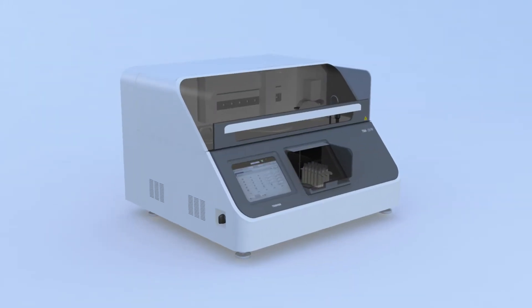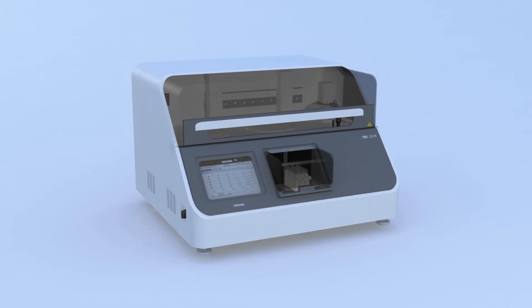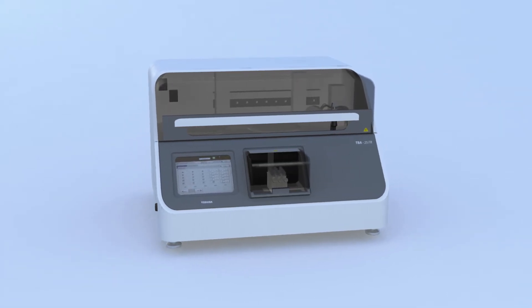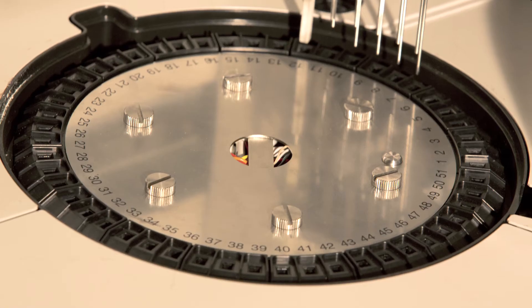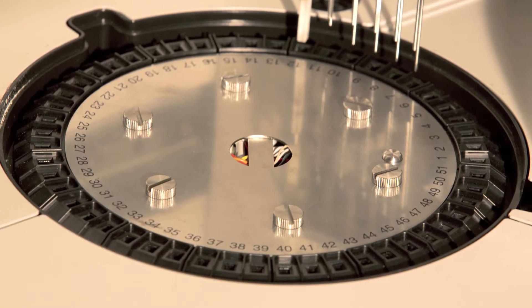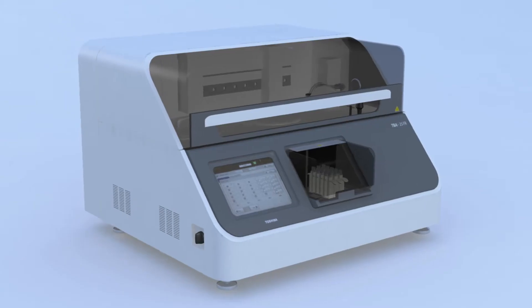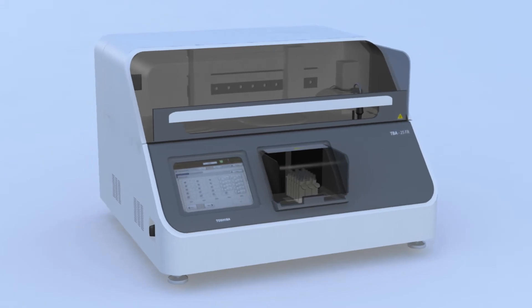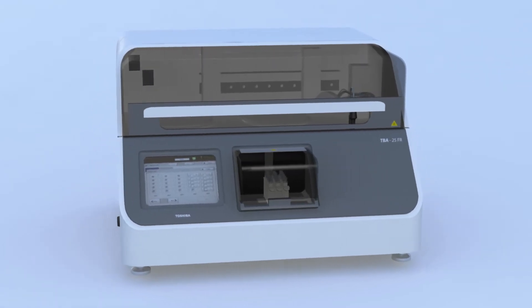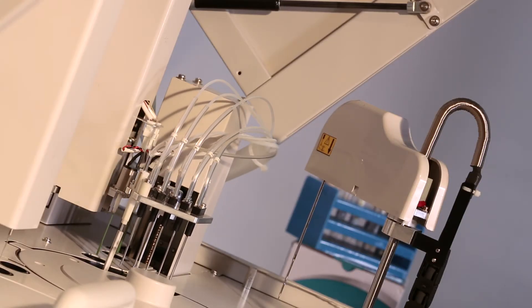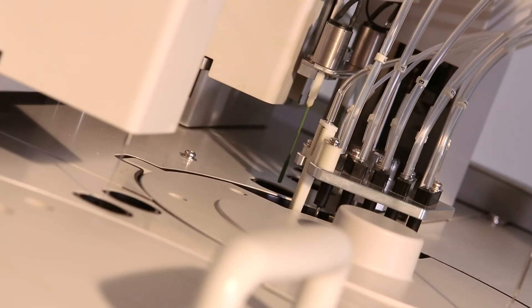The highly polished cast hard glass cuvettes made of glass quartz in TBA25FR are durable and eco-friendly, reducing recurring costs of frequent replacement. The reaction cuvettes are cleaned effectively during the six-step washing process using dual detergents to give accurate and precise results.